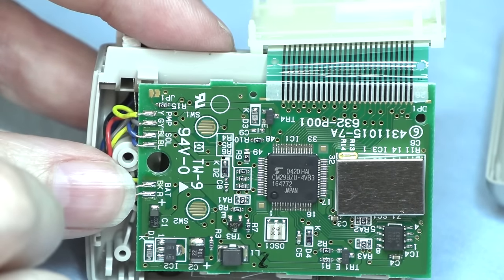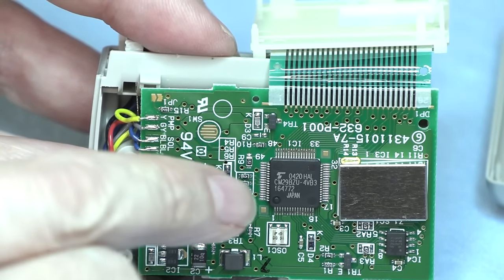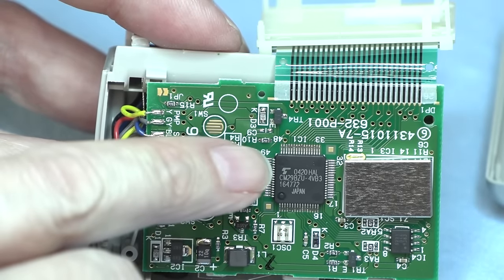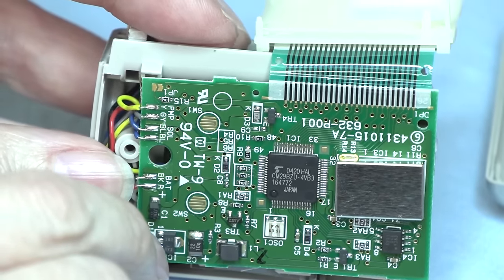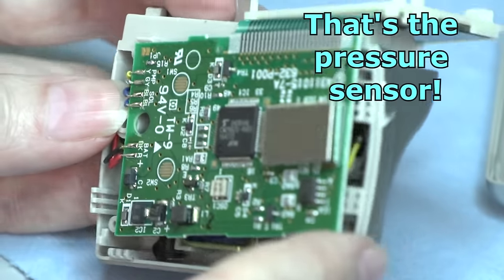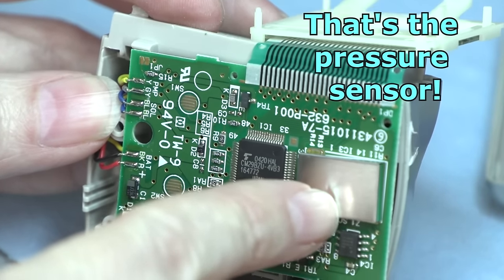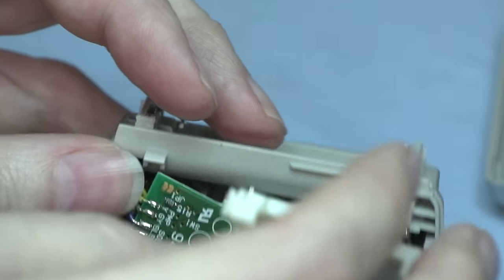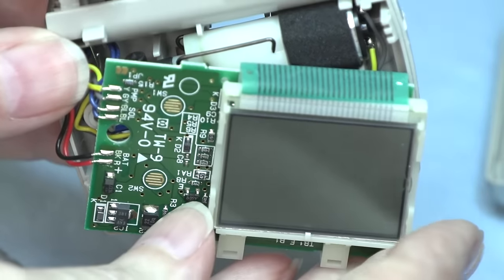I definitely bought it in 2014 or 15. I'm pretty sure. Could be using an old part. Who knows? But there you got a little shielded area there. Definitely shrinkified. Got the zebra strip on the LCD screen.